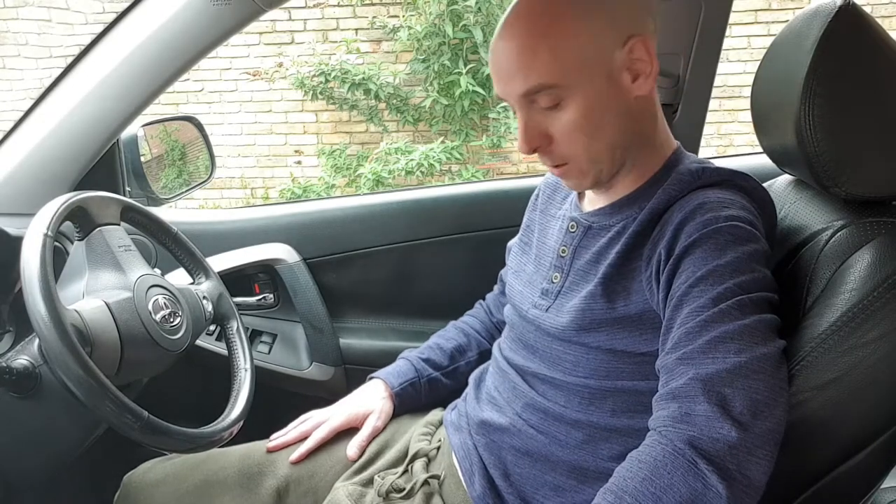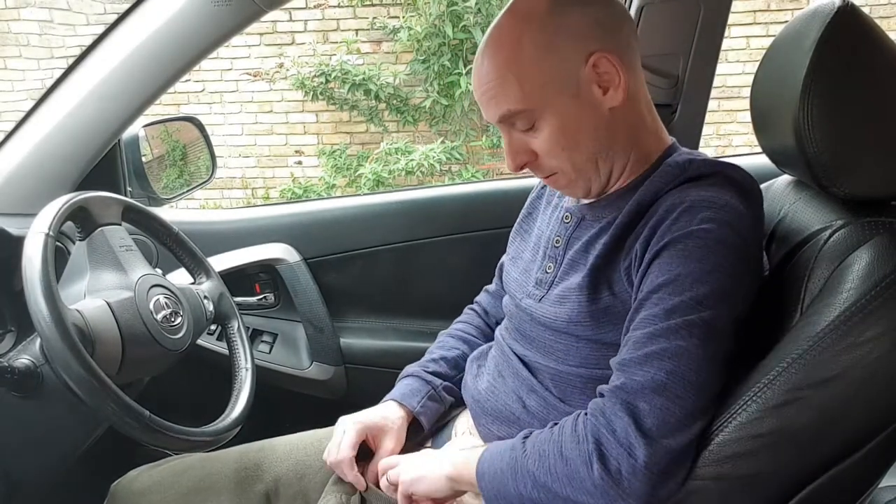I appreciate the angle might not be the best — it's the best way I could set this camera up without chopping my head off, so you can fully see all of my body. As I say in most of my videos, I'm going to be revealing my stoma, so you are going to see the stoma and potentially poo can come out as well. If you don't want to see that, don't watch it. It hasn't happened in any of my videos yet but there's always a first. So let's have a go. My stoma bag is here — you can hear it rustling. It's actually quite empty but for this video we'll just crack on and change it anyway.